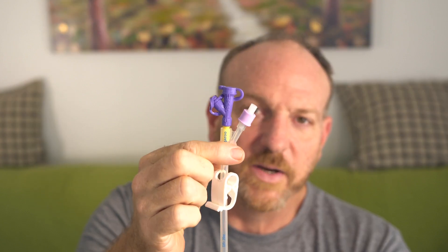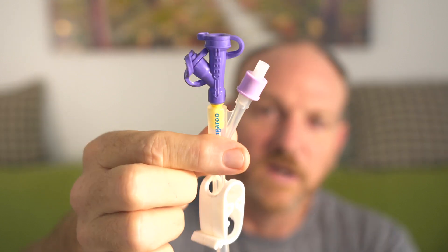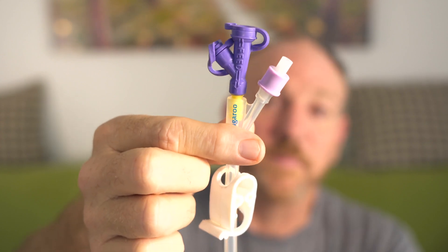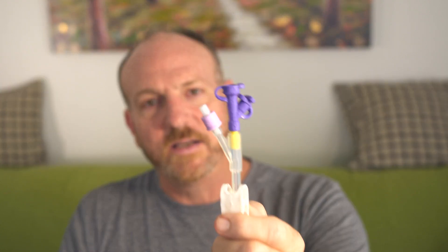Hey guys, welcome back. Here we are, finally to talk about how to use your stomach tube, how to prepare for that, how to use it, and some of the tricks I learned on how to make this thing work for me. This was not exactly like mine, the one that I had, but it's really hard to find a medical stomach tube somewhere in the country for me to use as a prop.